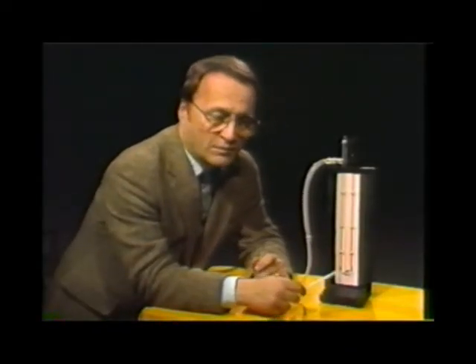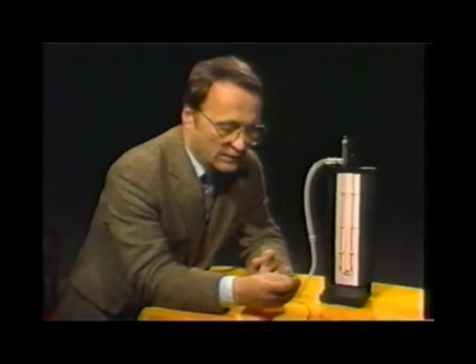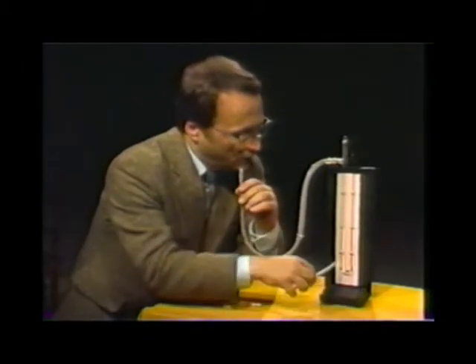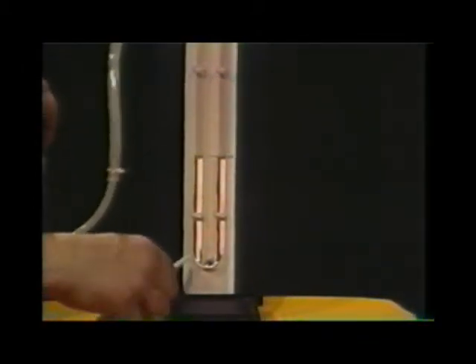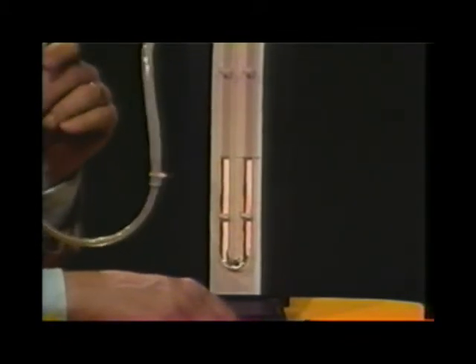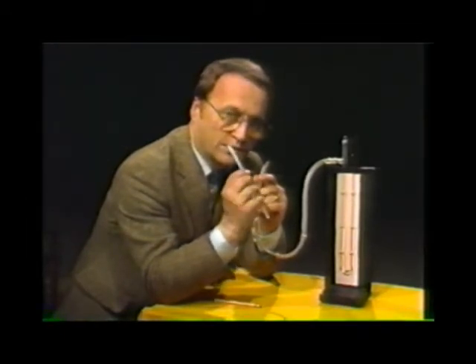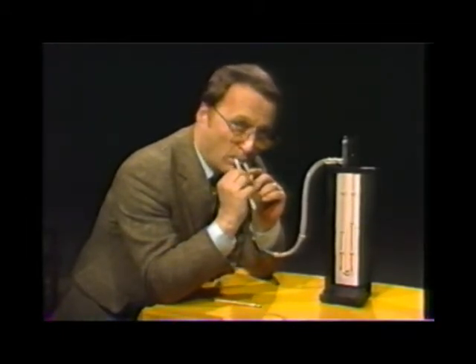Now we'll illustrate the use of a U-tube manometer for estimating subglottal air pressure. Here again we use our leak tube, and now the other tube is an oral manometer, U-shaped, that you fill with water and put a centimeter rule piece of paper behind. I simply blow on both the manometer tube and the leak tube at the same time. My target is a line equivalent to five centimeters of water pressure — watch how easily a normal can generate and hold this in the presence of a leak.